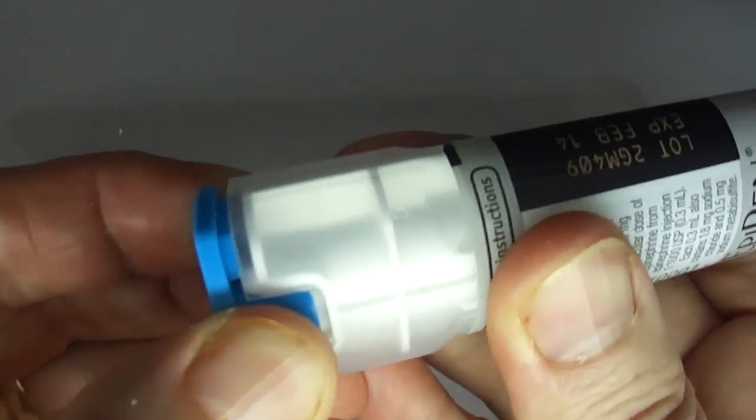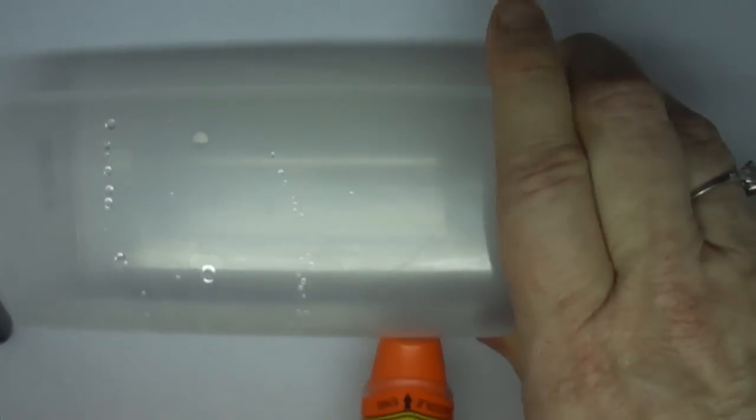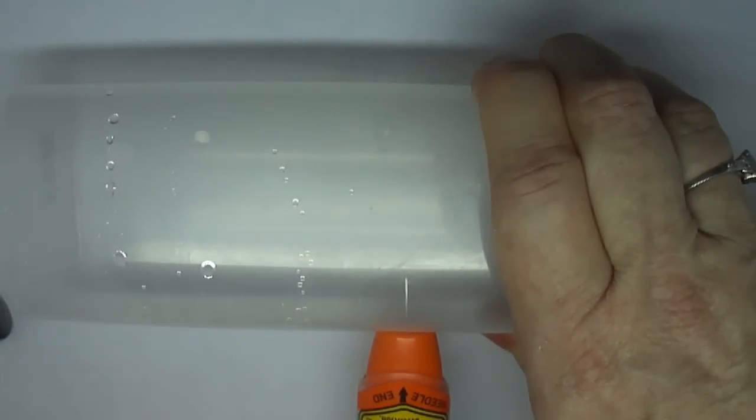EpiPen device. Remove the safety cap. One, two, three.